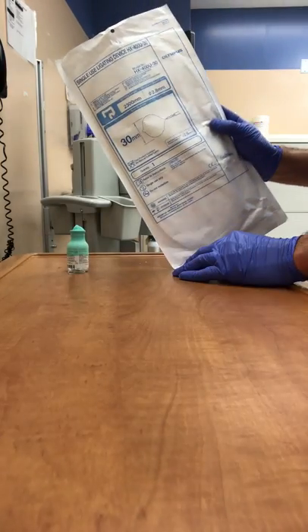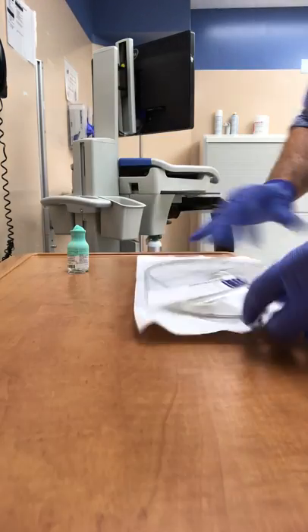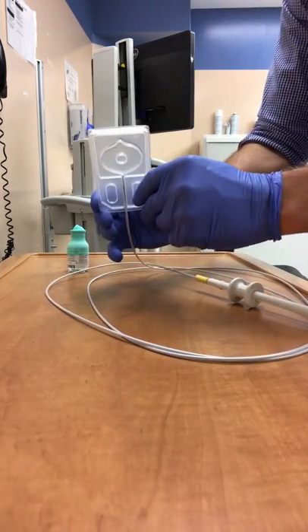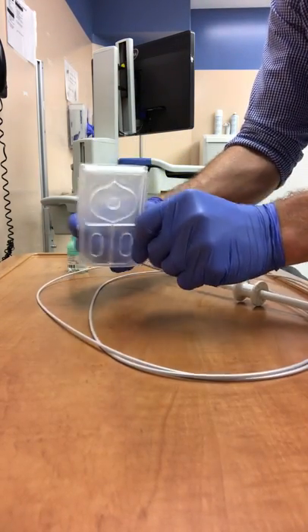This is a quick video refresher on the Olympus Polyloop ligating device. Remove the loop from the packaging and remove the cassette from around the loop itself.